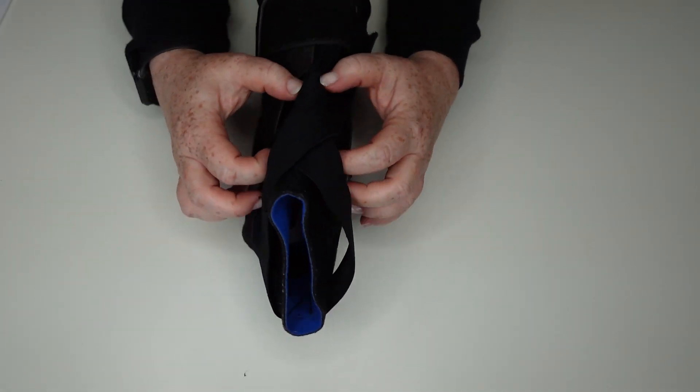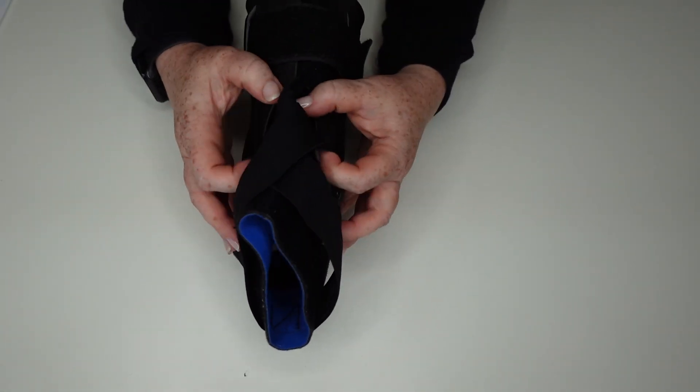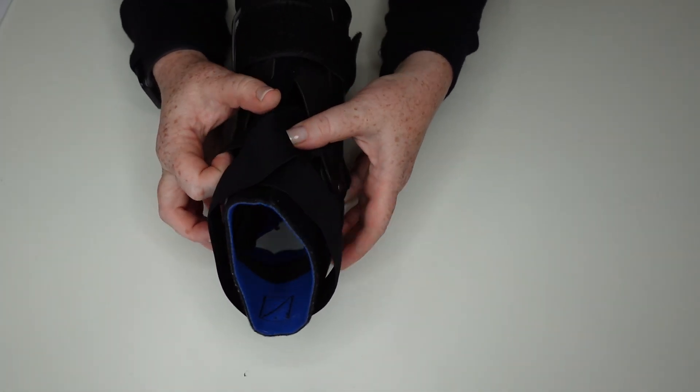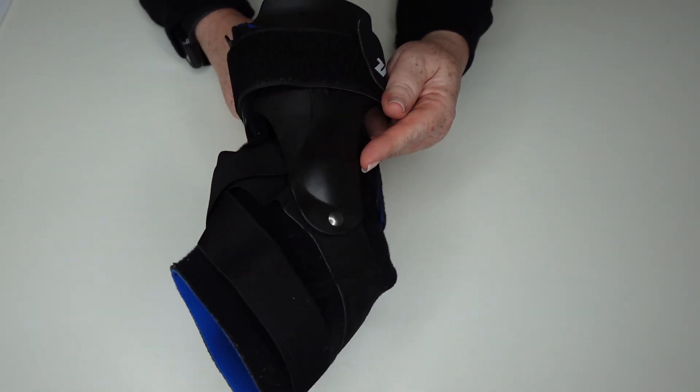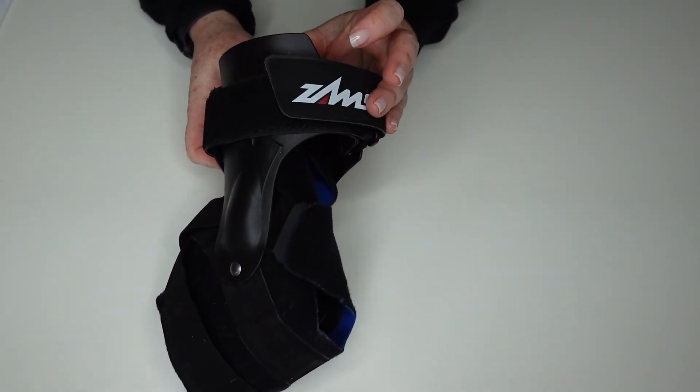It goes on secure and you can have your support straps set to whatever setting is most comfortable for you. You don't have to worry about adjusting it every time. You just slide it on and you're ready to go, which makes it really convenient, especially if you're wearing this for extended periods of time.